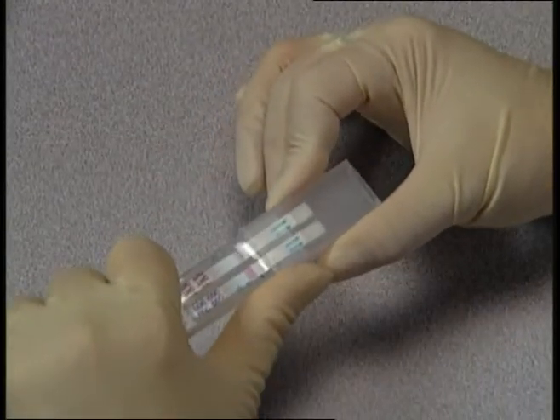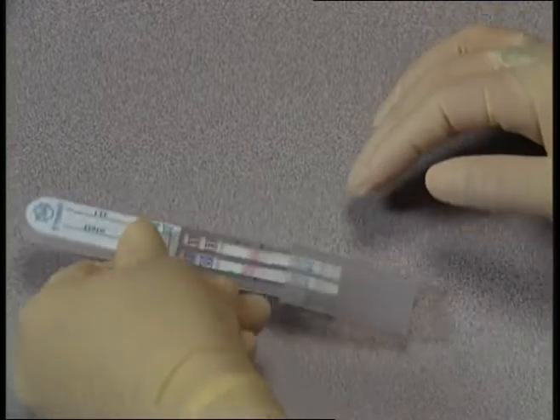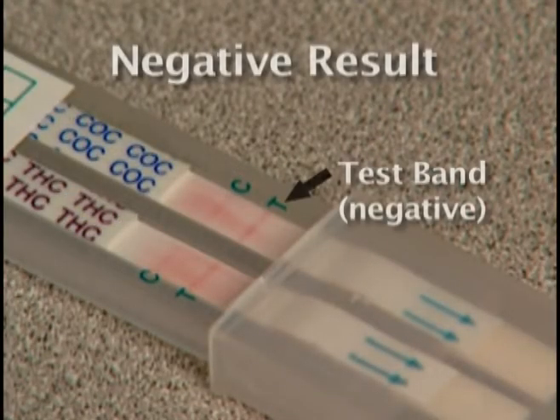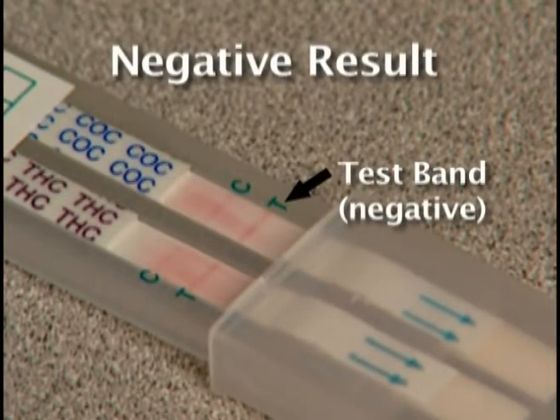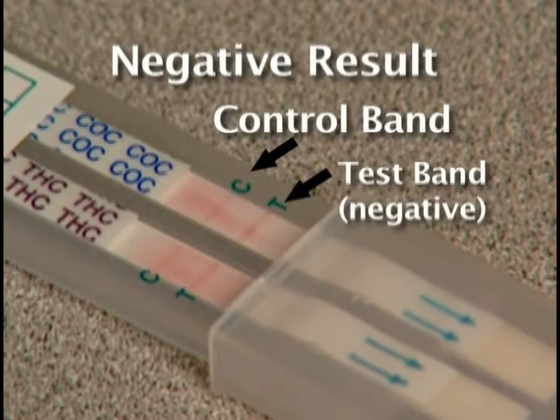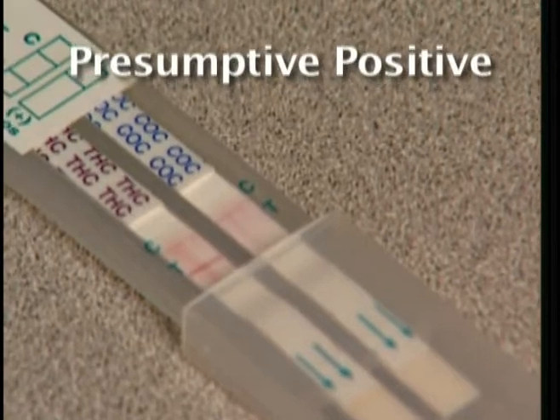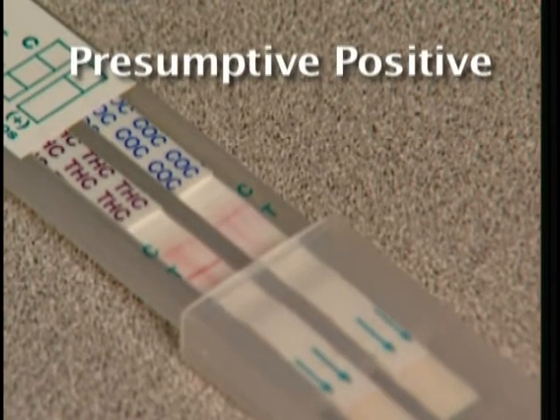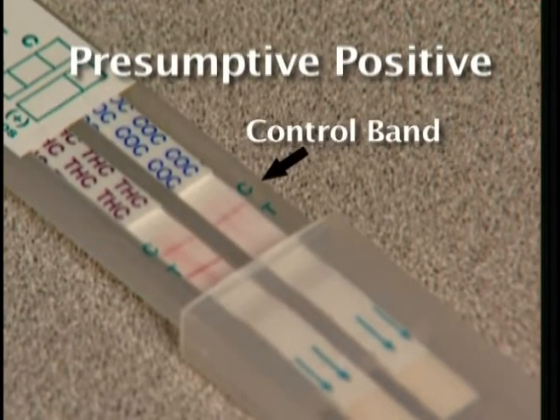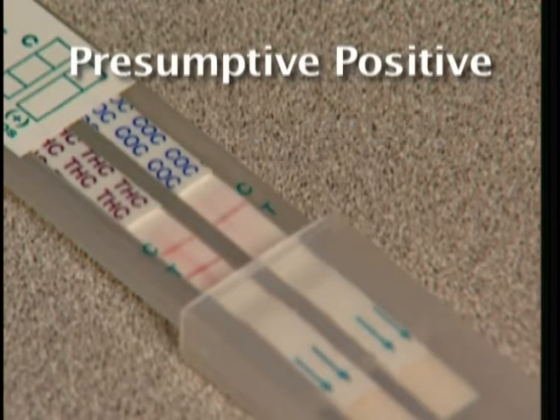Slide the sleeve down to the read indicator mark and lay the device on a level surface. Negative results are ready to interpret once the control bands C form. Presumptive positive results can be interpreted once the control bands C form and the membrane background clears, in 5 minutes or less.